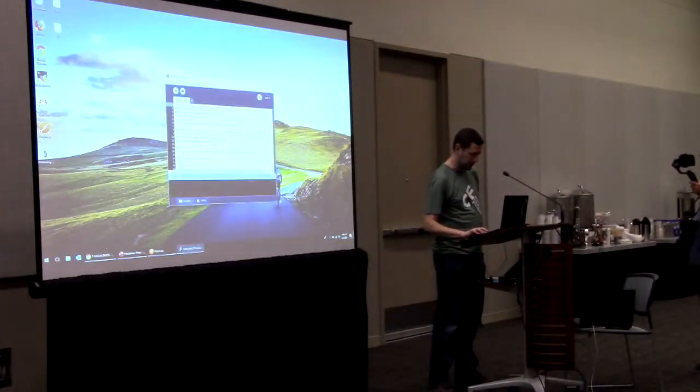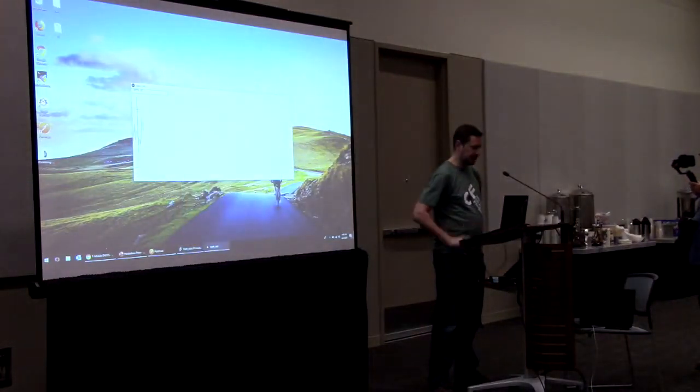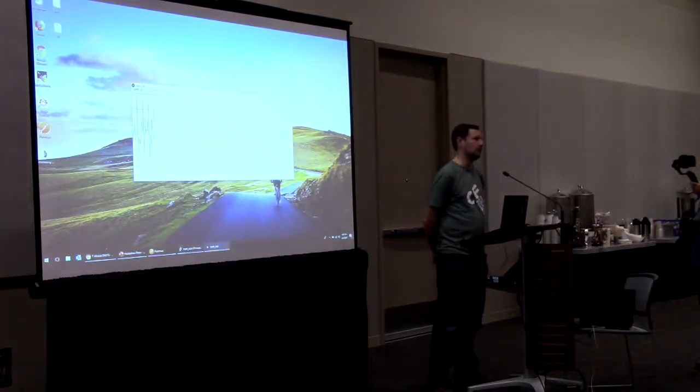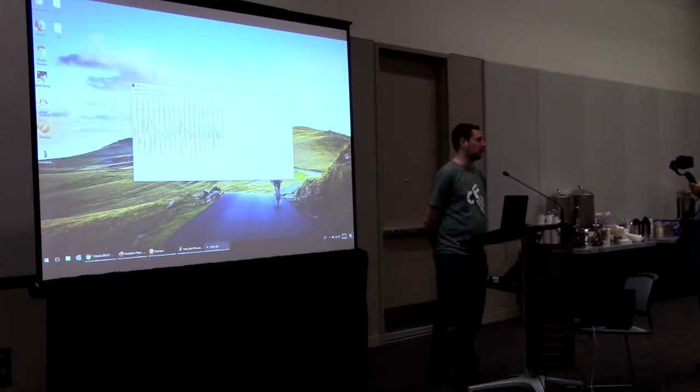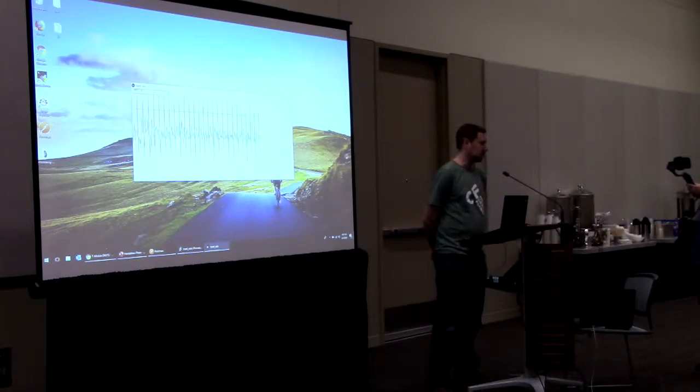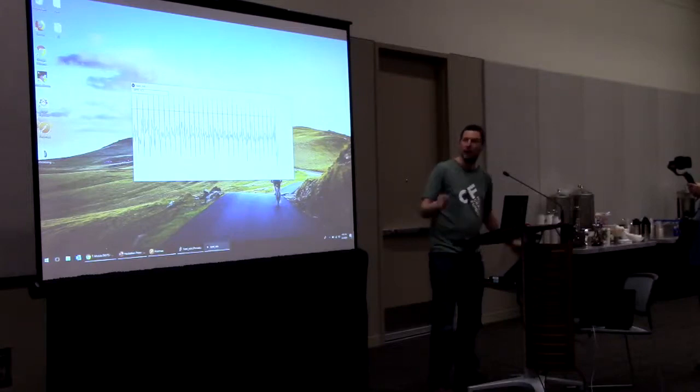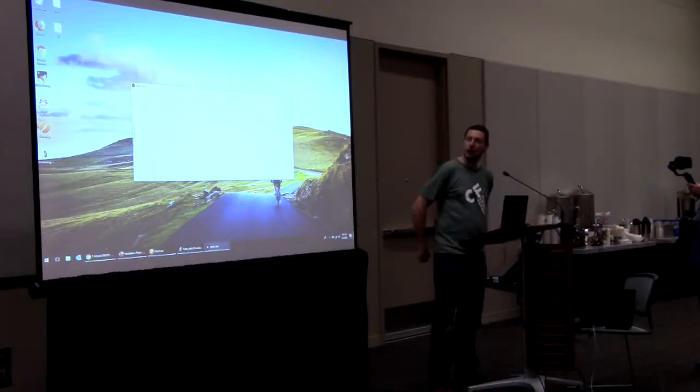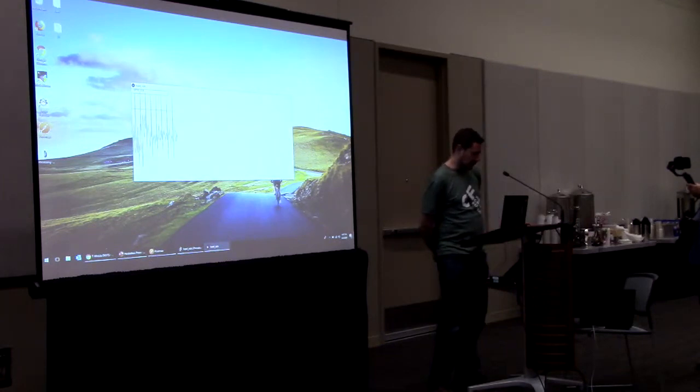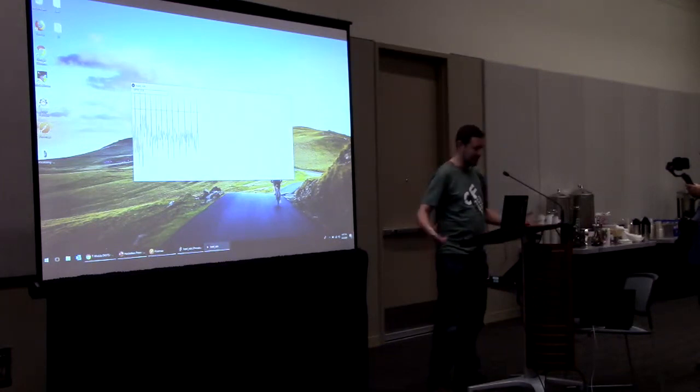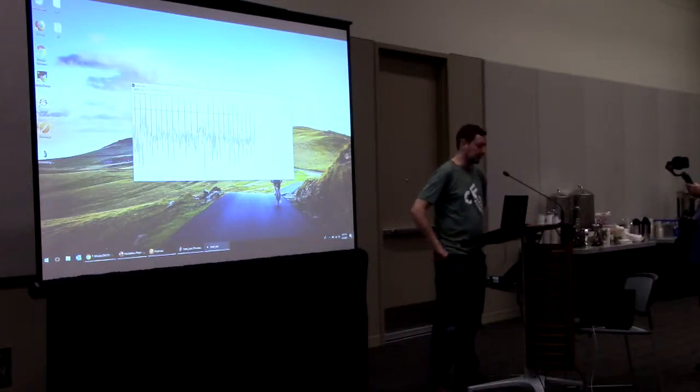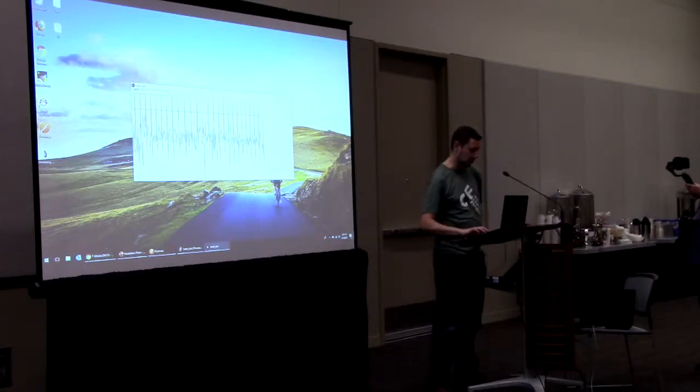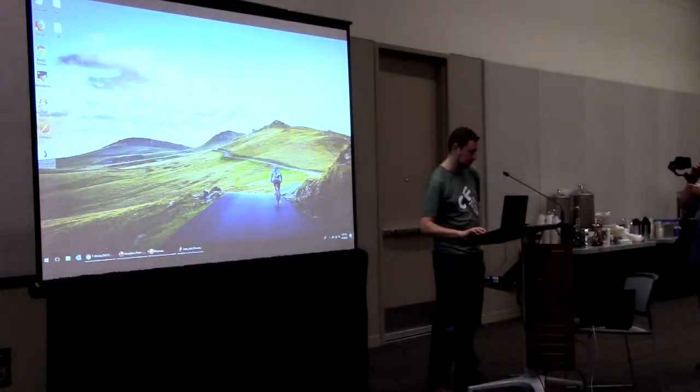I'm going to show that it is actually processing EKG. Just a moment here. This is an application that is actually reading from an MQTT queue here to actually show my real EKG as I'm standing here. Unfortunately, this is just a three-wire sensor, so if I'm moving around, you'll actually see it go kind of weird. But it is showing right now that there's a heart rate of 126, which is because I'm standing and talking. But this over here is the live sensor. I'm going to close this out here because it kind of messes up some of the other processes in the background while I'm in that diagnosis mode.